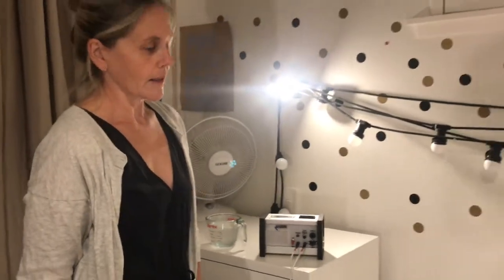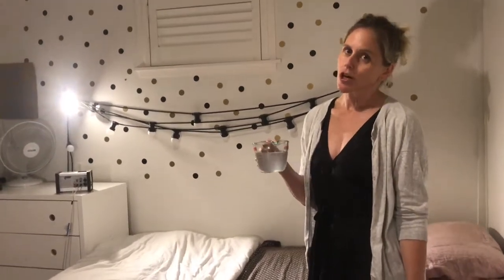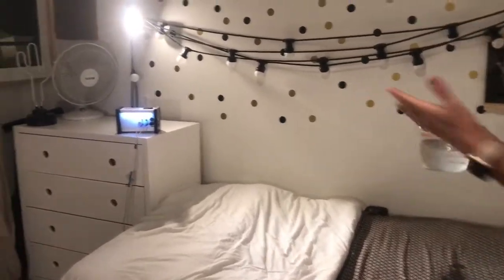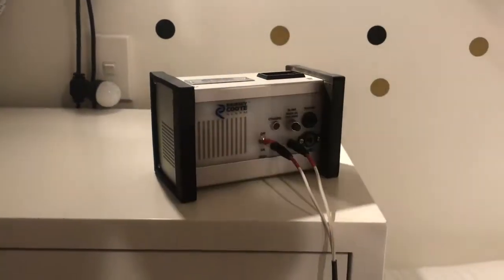In the night, the alarm is going to go off when they wet the bed. To demonstrate that here, I've made up a solution of salt and water, because water alone won't actually set off the alarm. This is going to be really, really loud. So it's the middle of the night and your child wets the bed — the alarm goes off and the child can see the alarm because the lights are on, and the child will turn off the alarm.